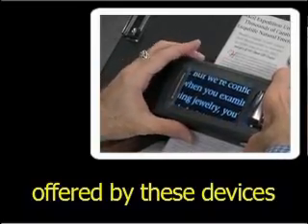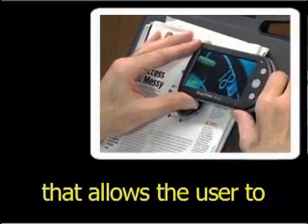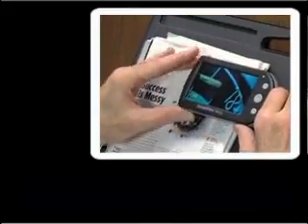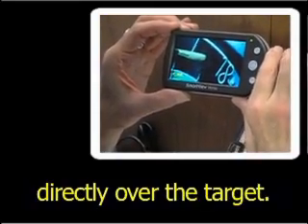One additional feature offered by these devices is a freeze frame option that allows the user to basically take a picture of the desired object or text. The image can then be viewed without having to hold the unit directly over the target.